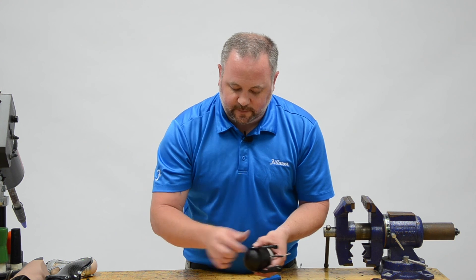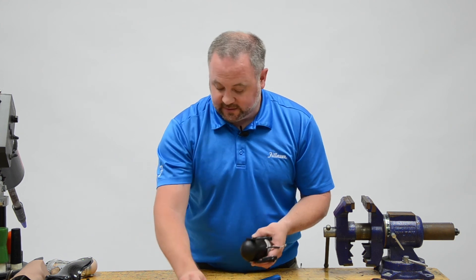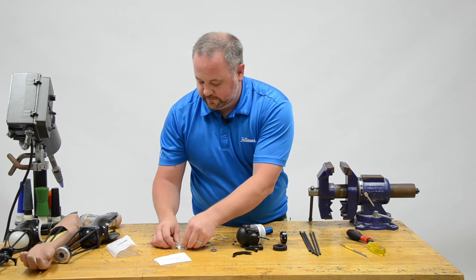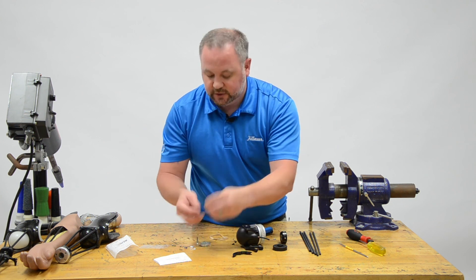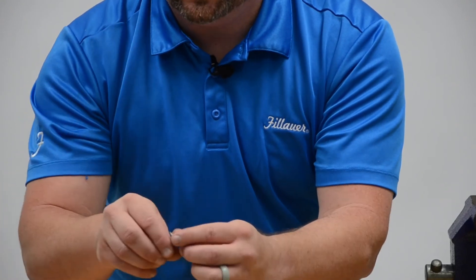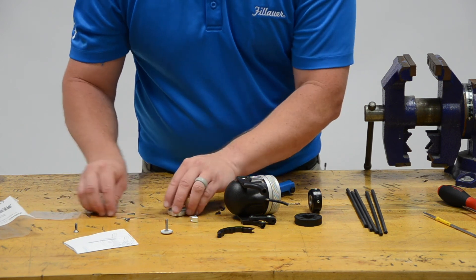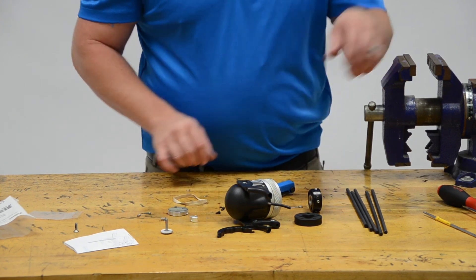For a standard Nexo setup, I would go ahead and put this on and lock it with this small plate. In the case of the lift assist, I have some other parts. There's the lift assist itself, a longer bolt that we'll need — we're going to replace the small bolt that went in that side plate with the longer bolt. There's also a small Teflon washer to place in between, plus some more bolts and a small spring.